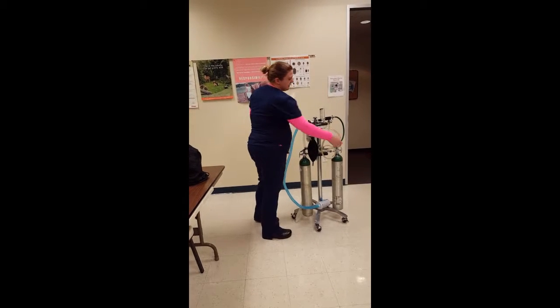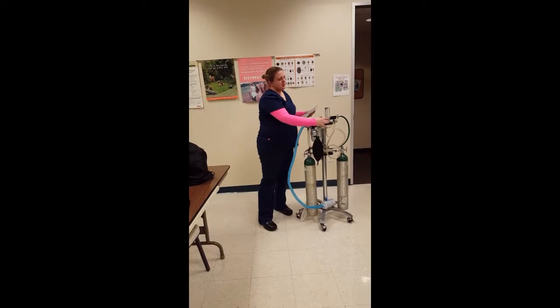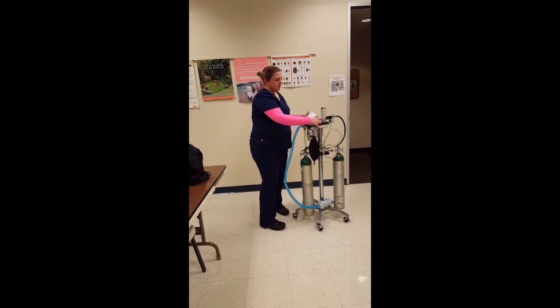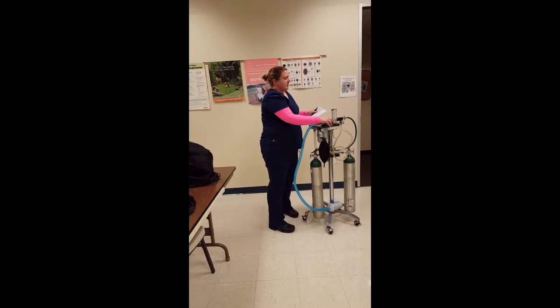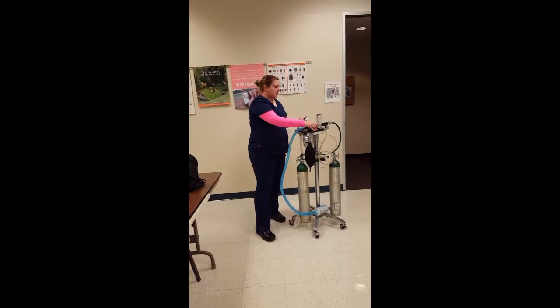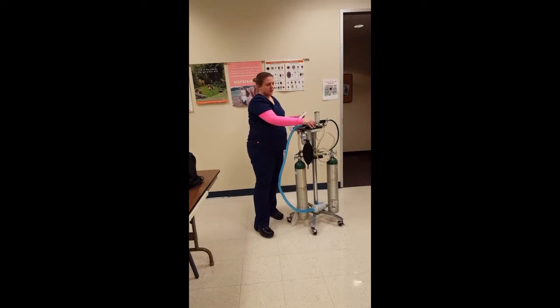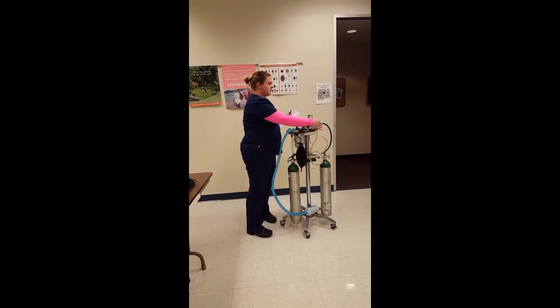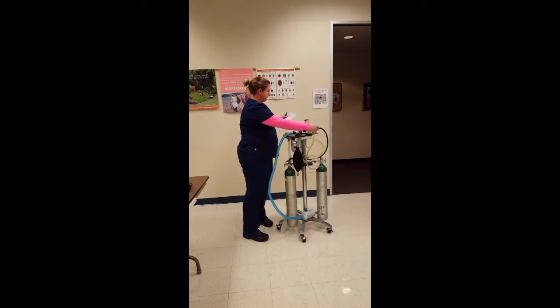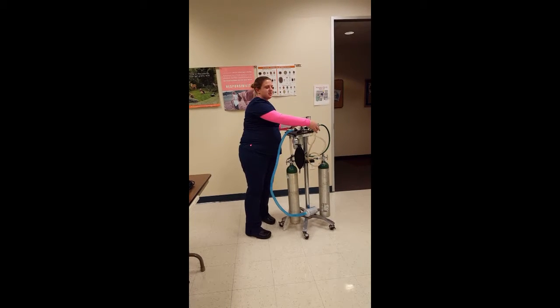It's going to come up through the green oxygen tube up to the flow meter. Flow meter tells you the flow rate of oxygen going into your patient, red at the center of the ball that is on the markers. This also drops the pressure down to about 15, 20, making it suitable for the patient. Also over here is the quick flush or oxygen flush that allows fresh oxygen into the system.